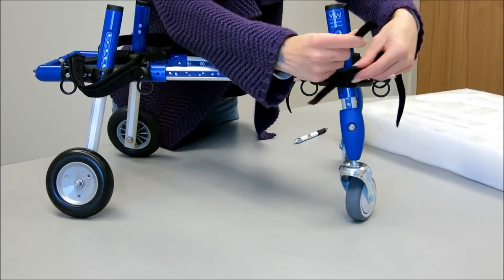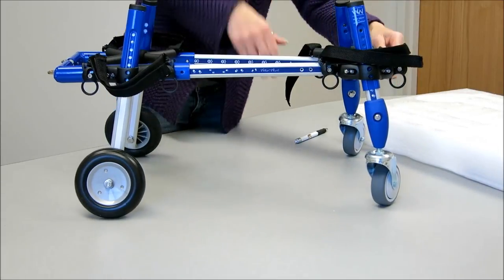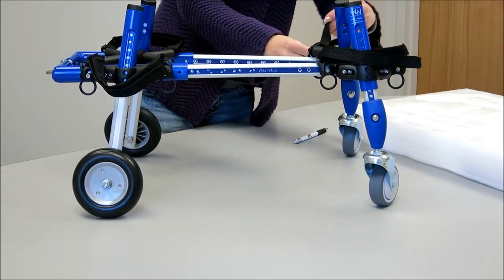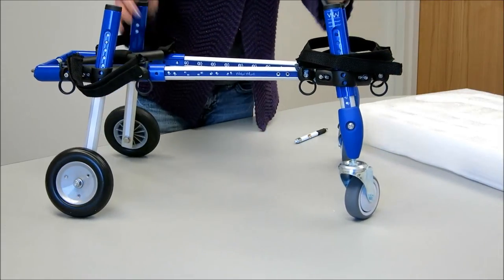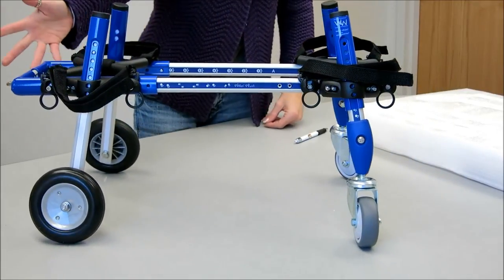And put the handles off to the sides so they are not sitting in the way. And then install your dog, and you're good to go. That is your front wheels.